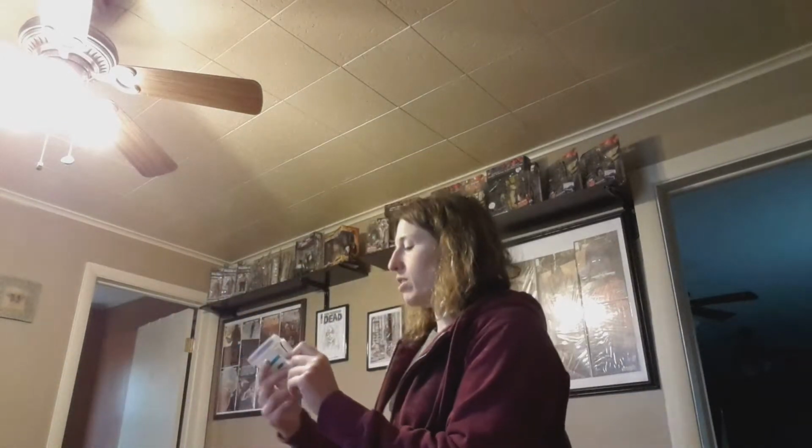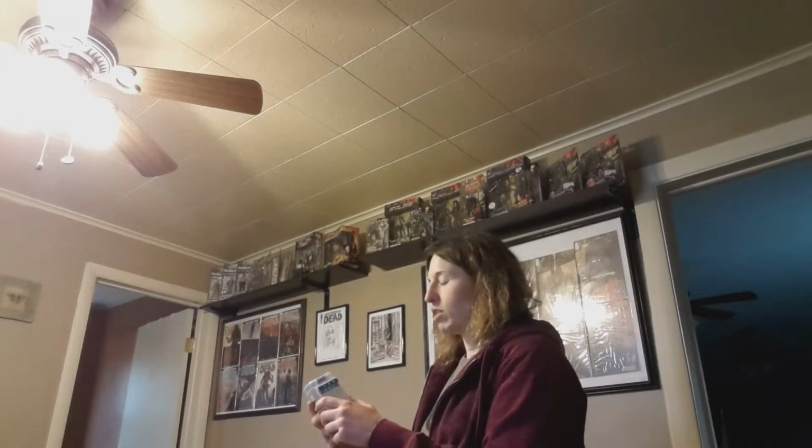So then, what you might want to have the parents do at that point, just for verification, is maybe take a picture, if they have a smartphone or a camera phone, to show you. The other thing you might want to have the family do is open back up the top, dump the urine out, making sure they still keep their disposable gloves on, and then put it inside a plastic bag.